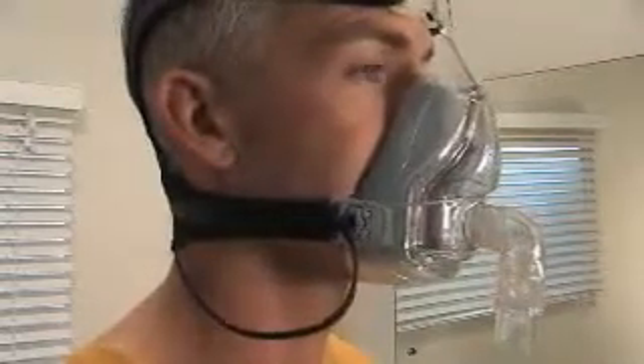Your mask comes assembled ready to use. It comes with a range of fit-and-forget features including an under-chin design and a highly contoured silicone seal for maximum comfort and stability.